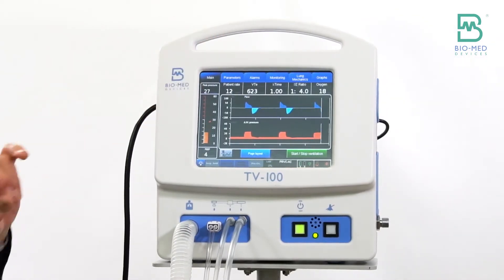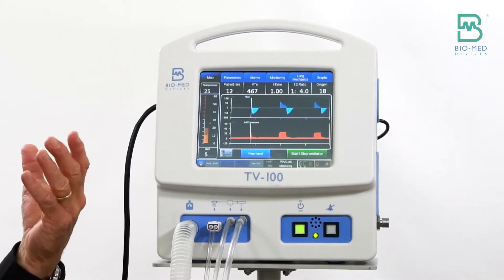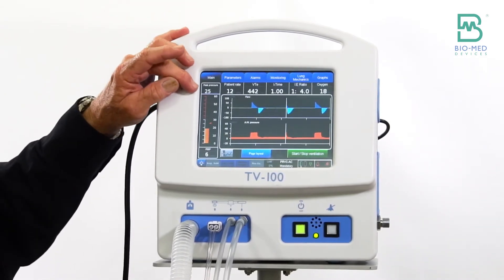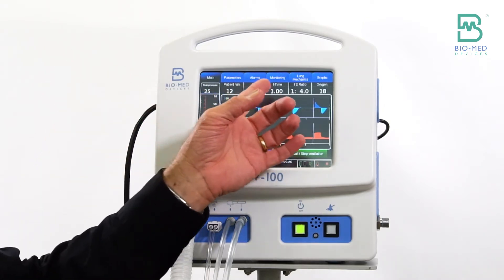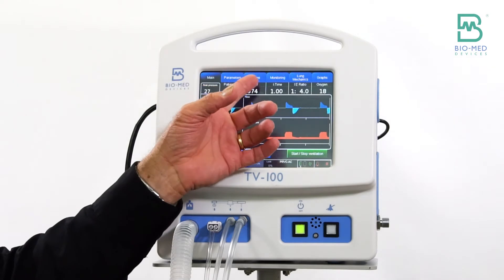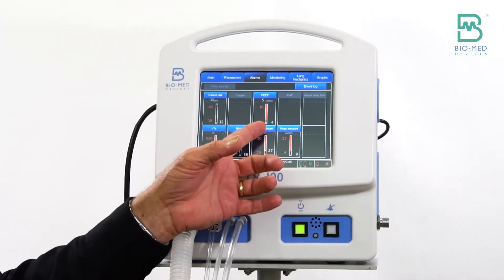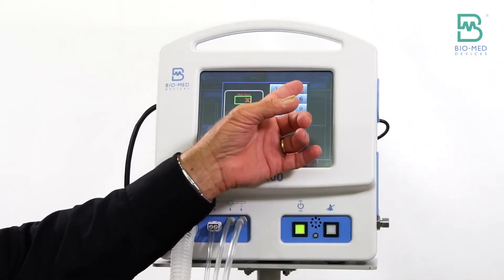At 28, I'm still letting that breath happen. But I'm alerting the user that I'm getting close to that limit. So rather than totally limiting at 25 and not really knowing where I need to go, now as a caregiver I can make the decision to either lower my volume so that my pressure is lower, or maybe I decide to raise my peak pressure a little bit.